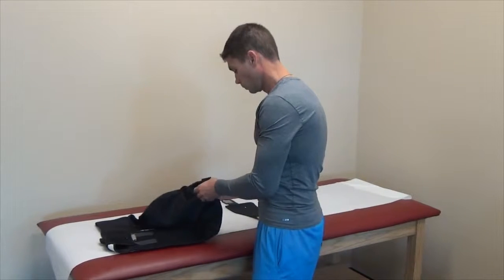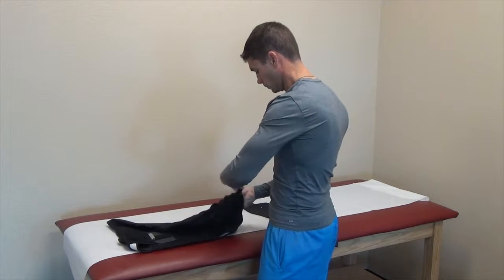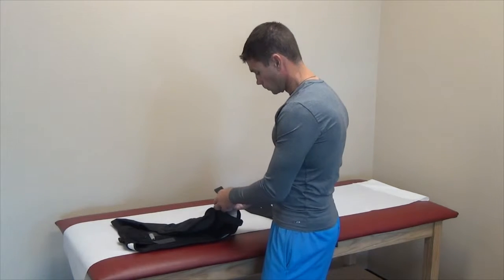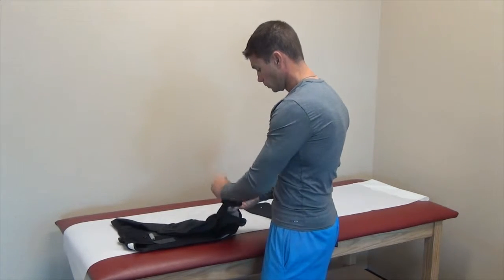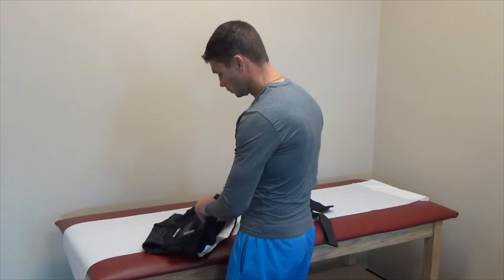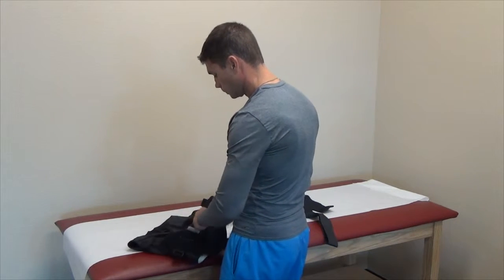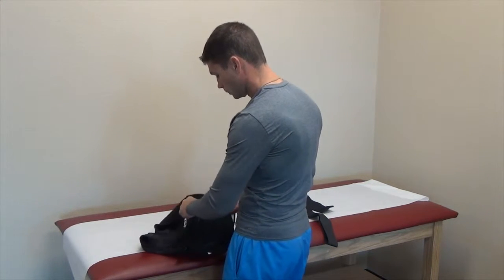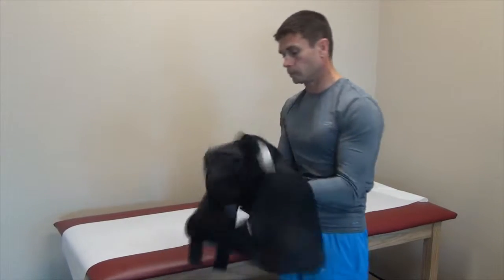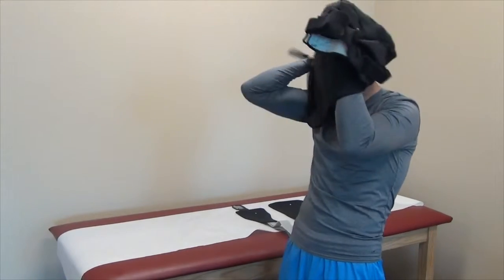Separate the components of the brace: the main garment, accessory straps A and B, and the shoulder pad attachment. Before applying the brace, loosen the arm strap and open the torso portion to allow the brace to be slipped over the head with the affected arm and shoulder going into the arm sleeve.